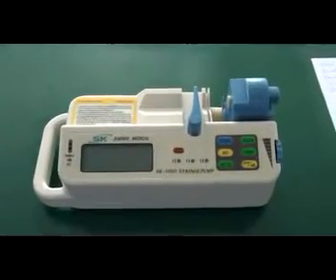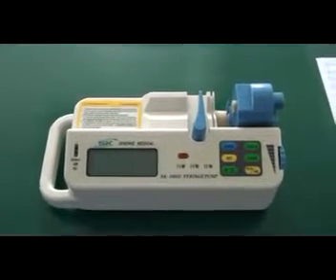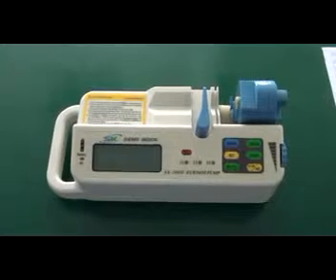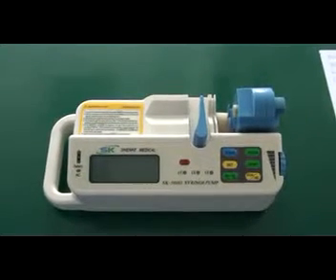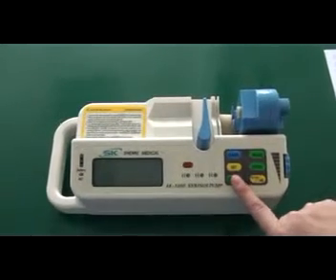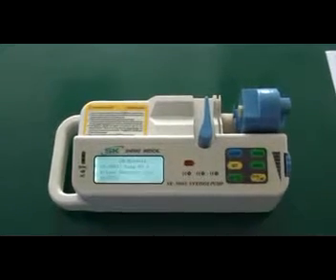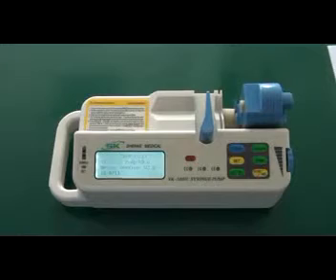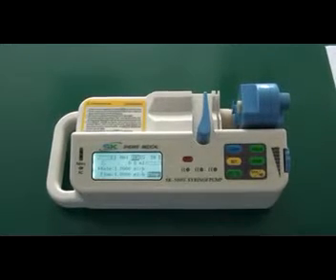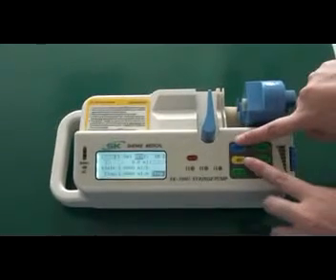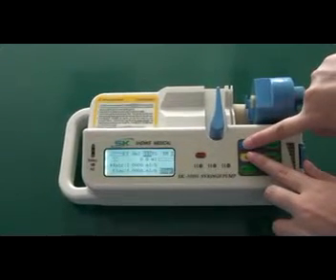Step 3: Install the syringe for calibration or specification setting. Firstly, press the power key to start the syringe pump. Secondly, press the clear and set keys together to enter into the interface of parameter setting.